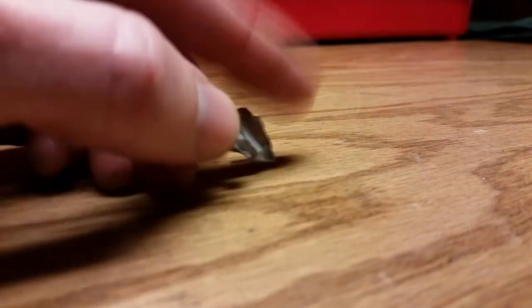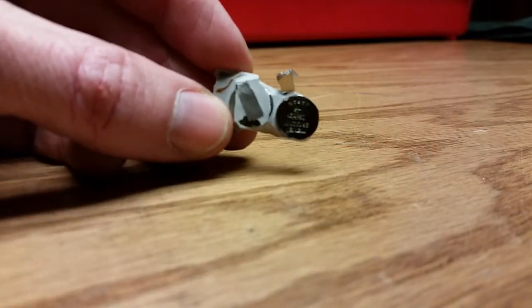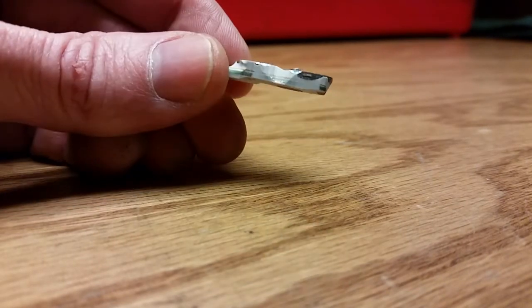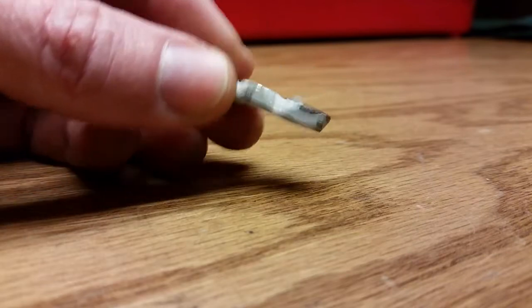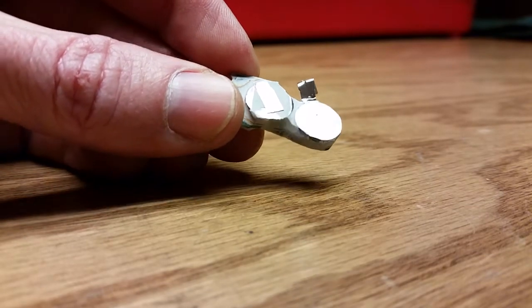Real quick video here. I finally remembered to save one of my used up, done Dexcom sensors, and I tore this apart. I actually took it out to my grinder and ground on it for a while to see what was inside.